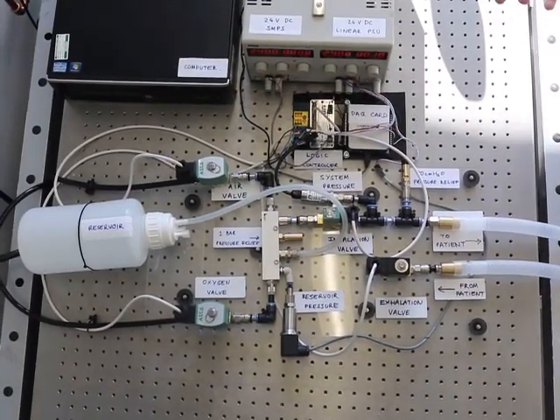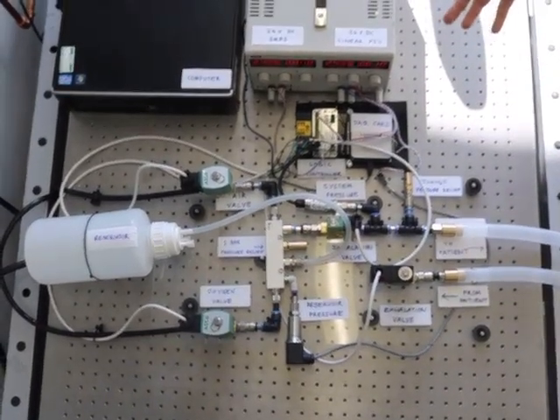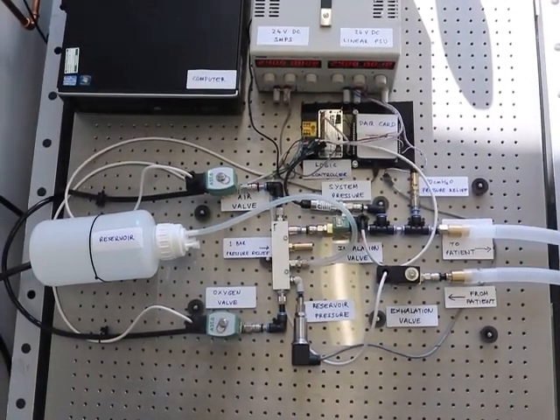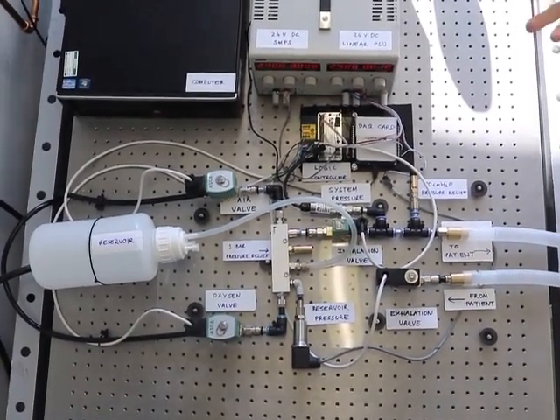Okay, to give you a better idea of how this system works, we'll show you here the Mark 2 prototype, pretty much where it all began, which was the Mark 1, but tidied up quite a lot and with a few different components.